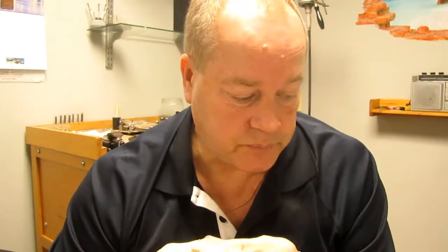One of our goals is that continuous hypermobility of the IP joints can lead to osteoarthritis of those joints, which can really hurt over time. Stopping hyperextension now preserves those joints for years to come, which is another reason we work with swan neck splints for Ehlers-Danlos Syndrome. We work with about 300 to 400 therapists across the country who do assessments and measuring. We're also developing a home measuring program where you can order a kit, go through the process, fill out the order form, send back the kit, and I build and mail the splints back to you — allowing you easier access to these splints.